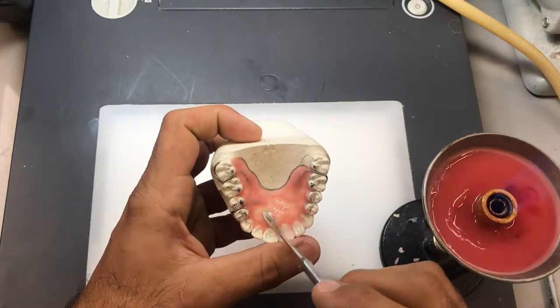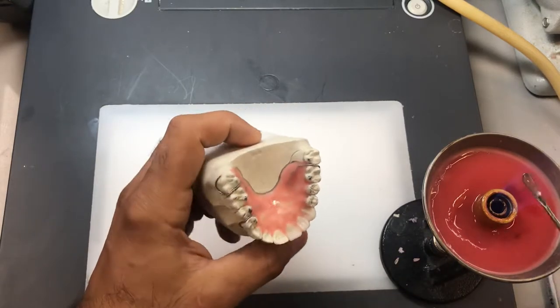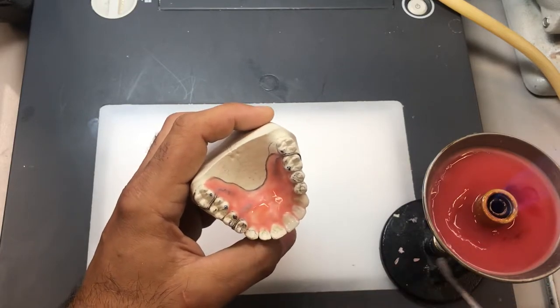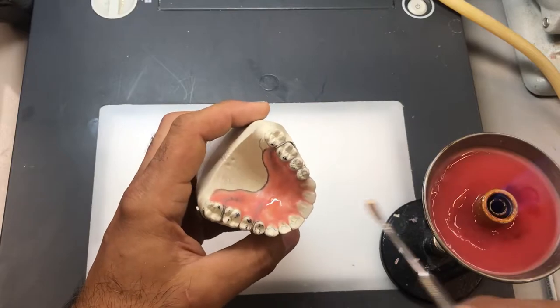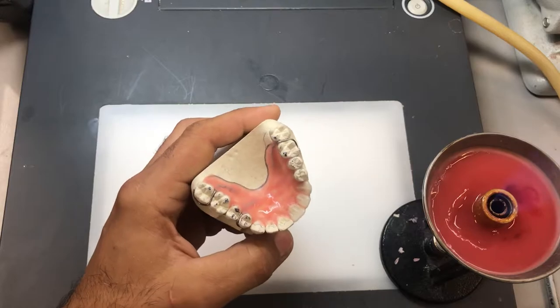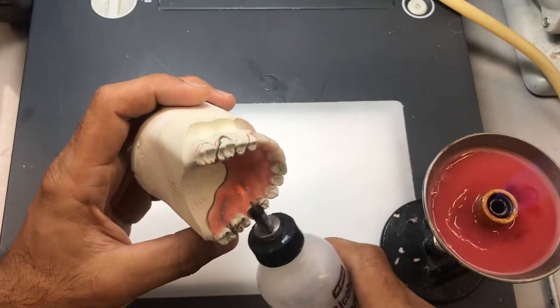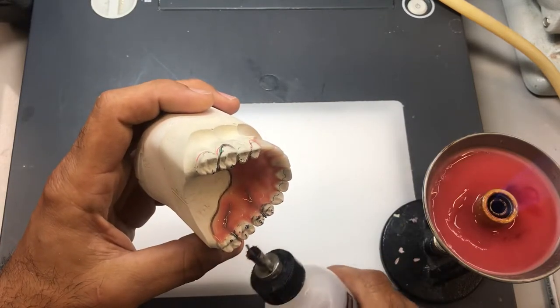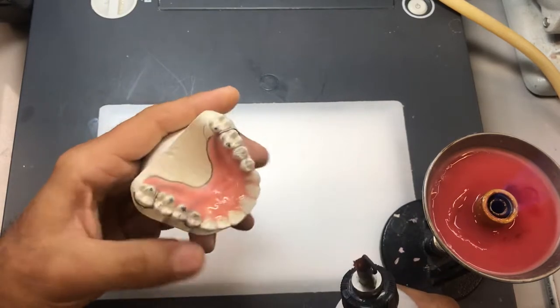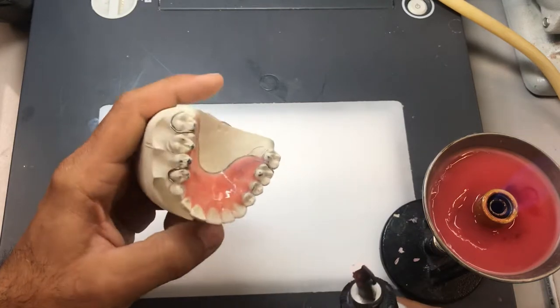When we bent the wires, we tried to keep them as close to the model as possible — probably no more than half a millimeter away from the model surface. Otherwise, if you have them too far, by the time you incorporate the wax on top of them, the acrylic base becomes way too thick. I've got some thin areas around the rugae, so I'm going to go over it again. Then I'll take my alcohol torch and gently flame the wax so it somewhat evens out and creates a smoother surface for the next step.